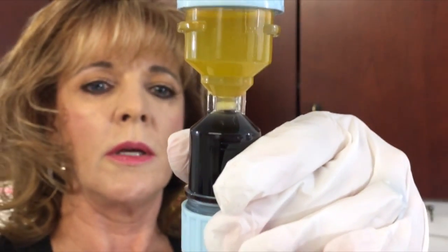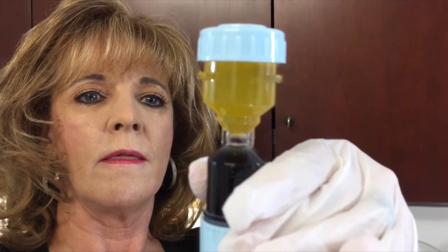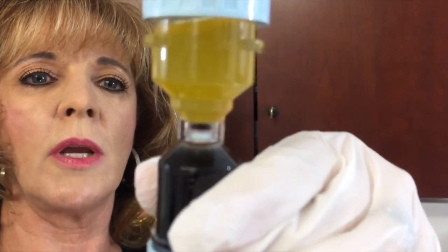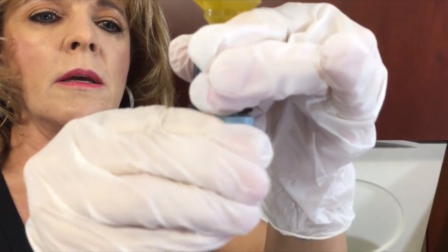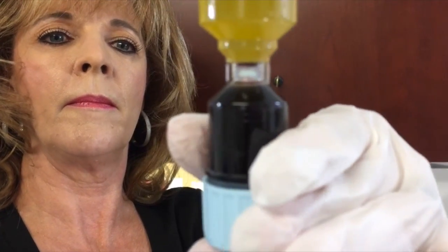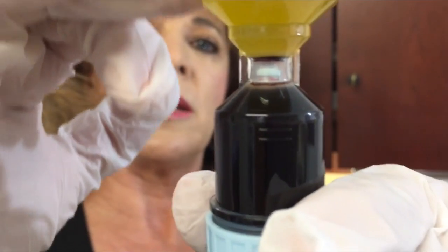You begin to lodge the stopper into the neck by turning the knob at the bottom counterclockwise until you can't turn it anymore. Then go up to the end cap and tighten it until it won't tighten any further. Then go back to your bottom knob. Now the platelets are sequestered into this part of the chamber and your platelet port is up here.